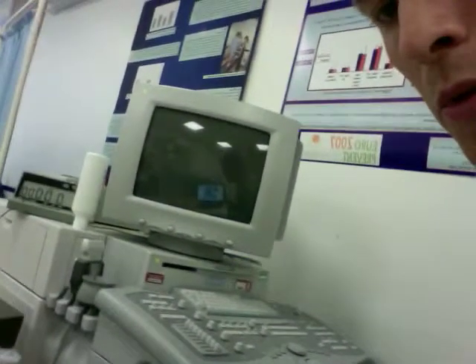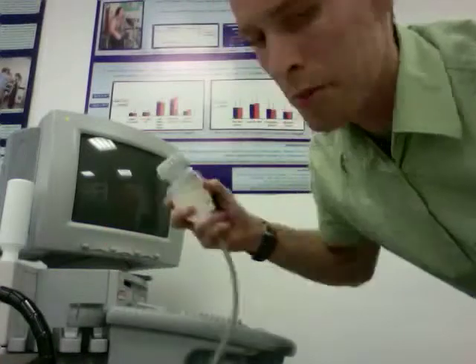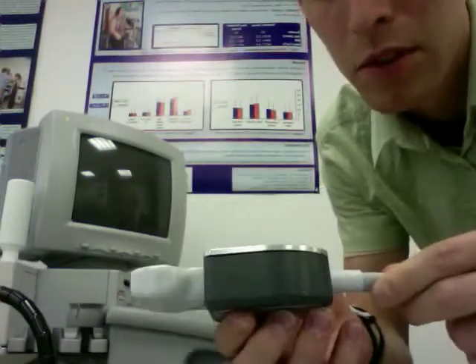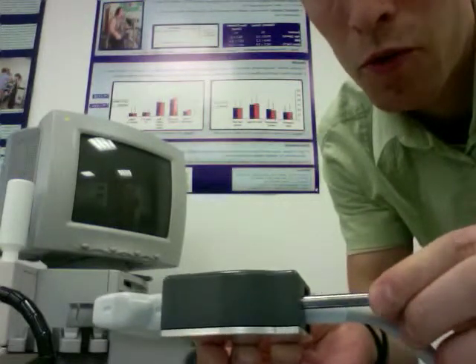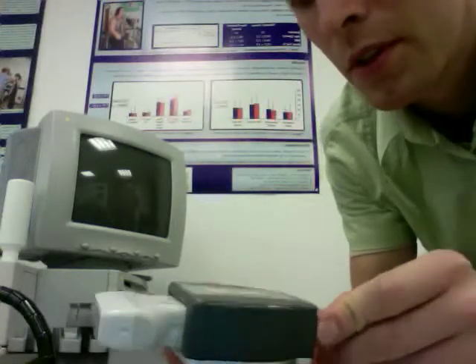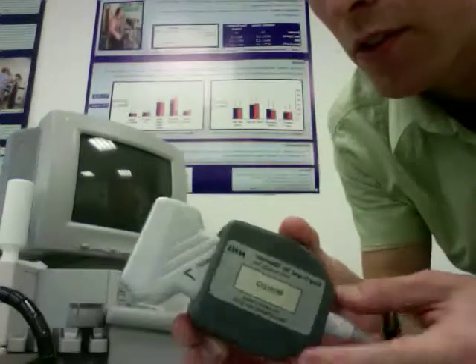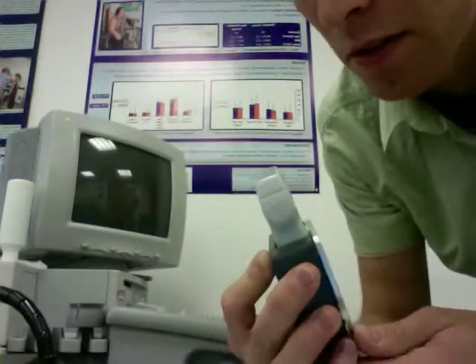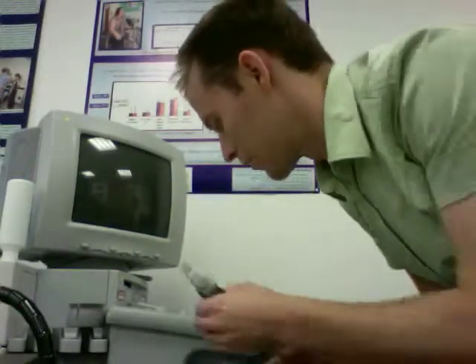If you look there, we have a probe, and I'll just show you the probe in detail. On the probe itself, we have this custom-made little attachment that wraps around the probe, and has a little attachment that will fit into our probe holder. It was made by this group here. It looks pretty simple, so anybody can make it. And it holds the probe pretty securely.